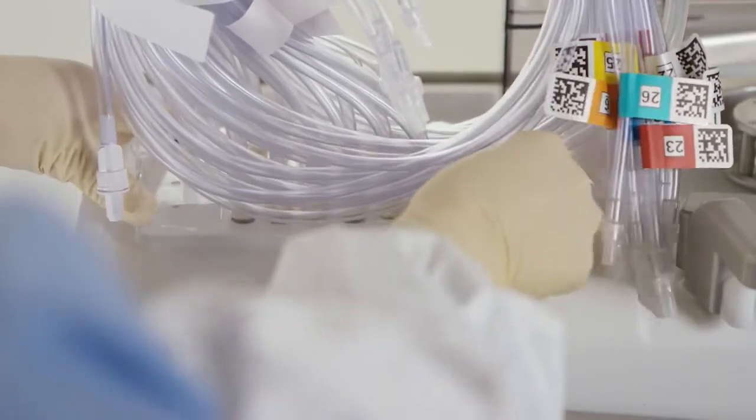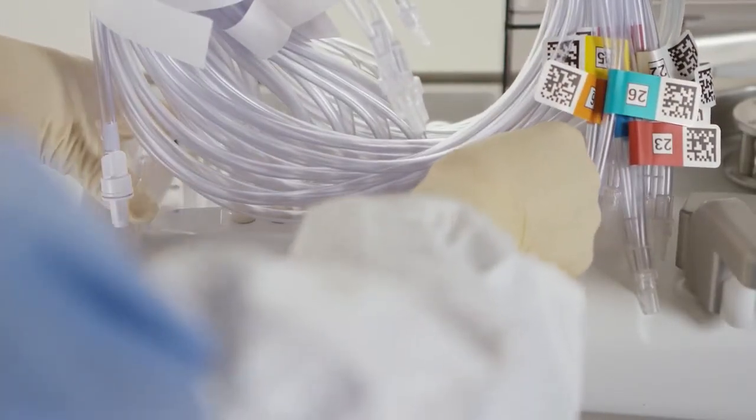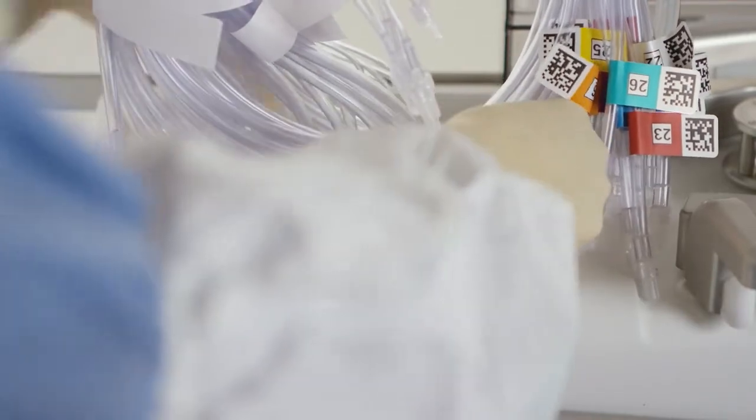Align the transfer set on the manifold and press down to ensure it is fully seated. You will hear clicks as the transfer set locks into place.